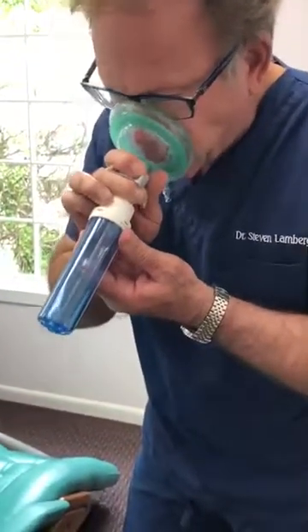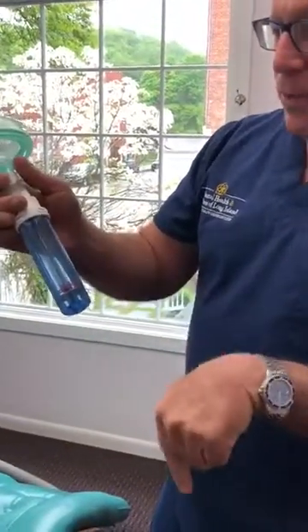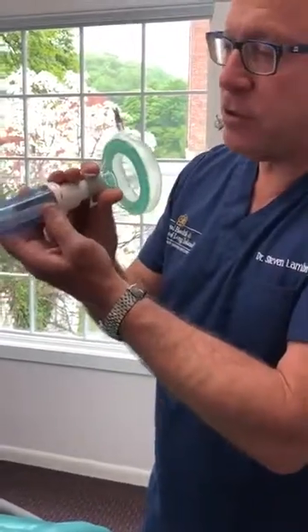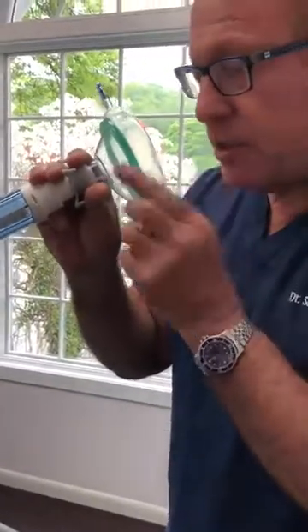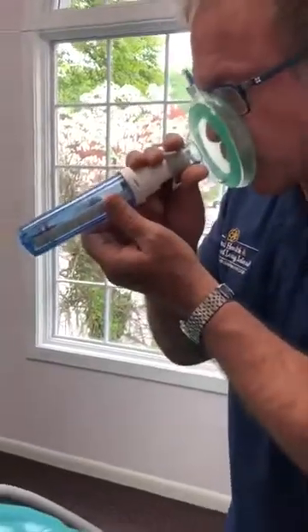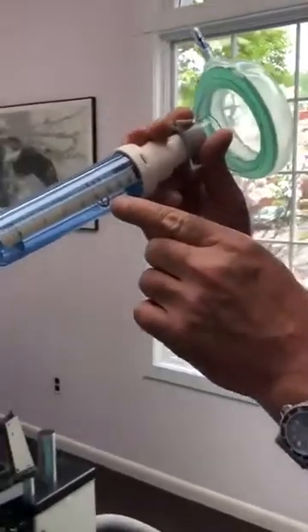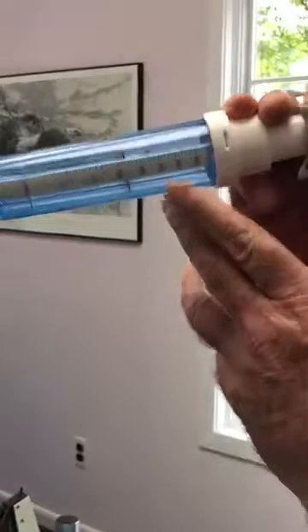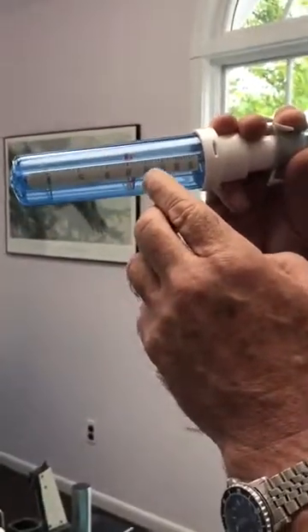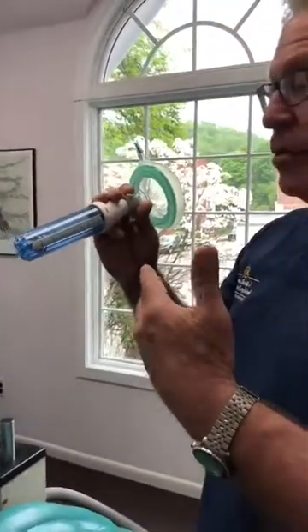Now I want to put this over my nose and do an inhalation. That didn't work because the red thing went back down — you want to hold this horizontal. I'm going to turn it towards you so you can see it go up. This is for the peak nasal inspiratory flow — you can see mine was 250. The red wheel stays up there when you hold it horizontally.